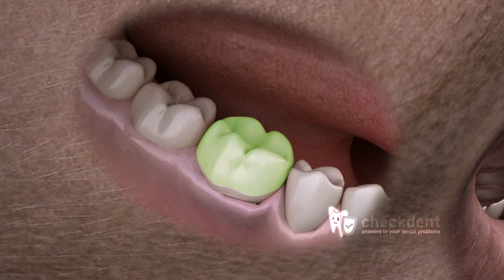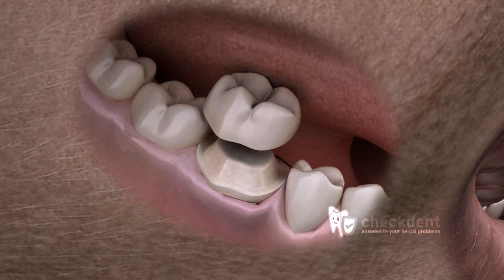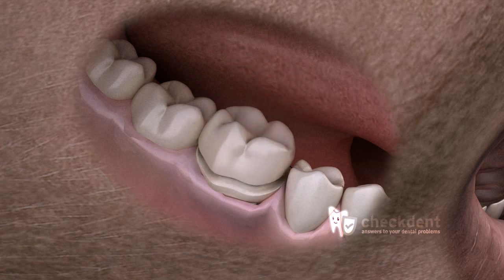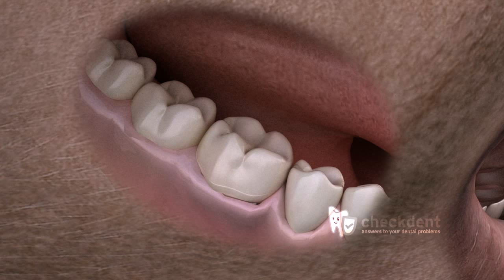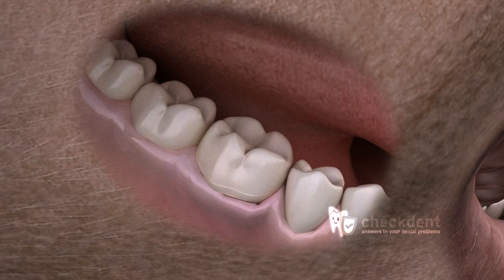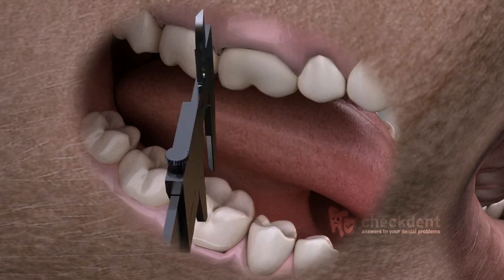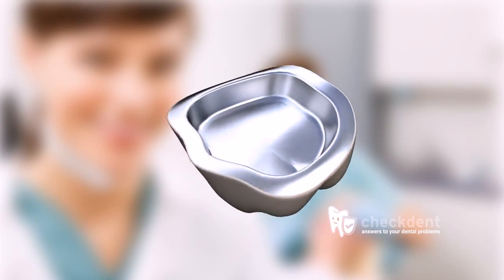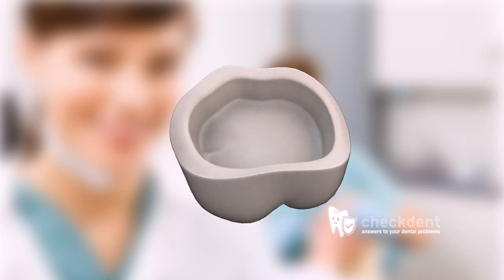The tooth crown is the part of the tooth that is visible in the oral cavity. In layman's terms, the artificial covering that is fixed over a damaged tooth is called a dental crown. There is a difference between the functional and aesthetic characteristics of a crown. An artificial crown should always achieve the functional aspects — the right fit against the opposing teeth as well as in the socket — which is the primary responsibility of the dentist. The aesthetic appearance is the primary responsibility of the dental technician, who fabricates the crown.